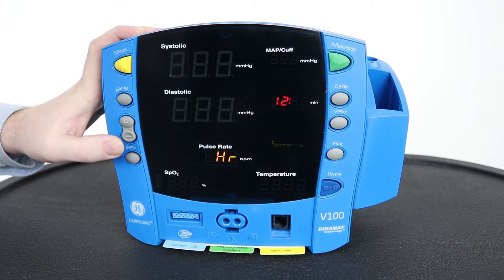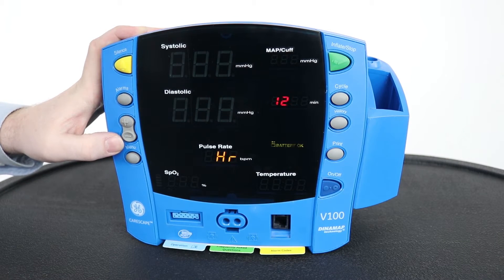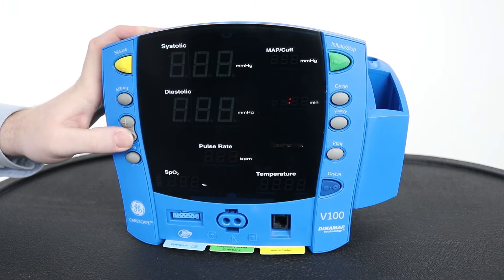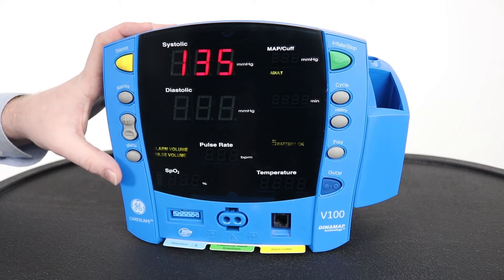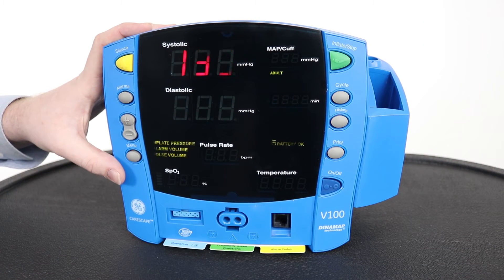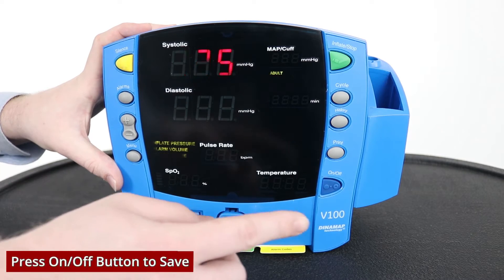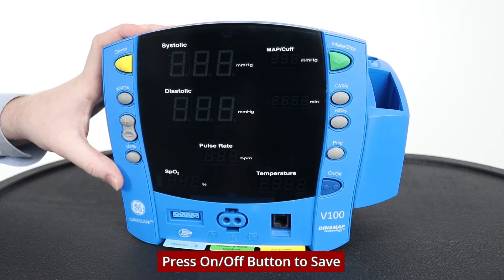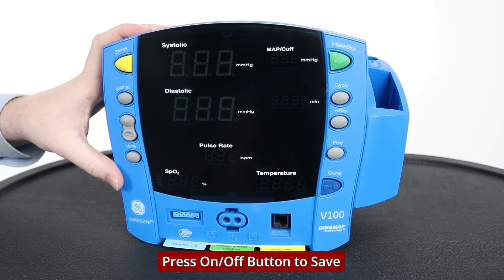You can change these things by using the positive and negative buttons here. Once you've completed all of your settings that you'd like to change, just hit the on/off button here and everything will be saved on your V100 system.